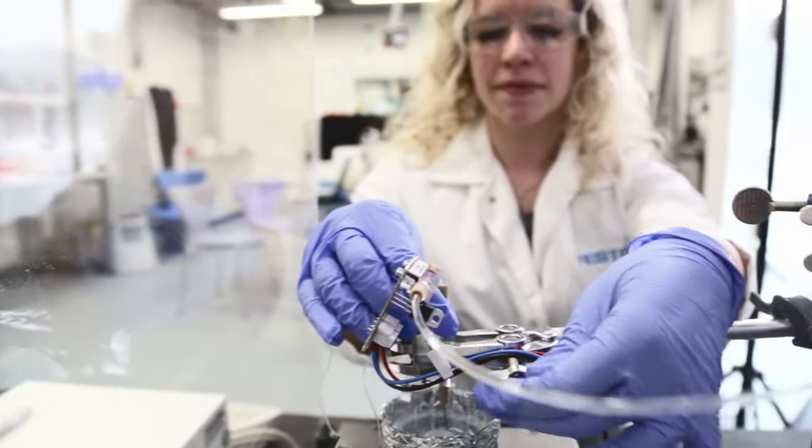Our extensive experience in medical technology enables us to take your specific requirements into account as early as the concept development stage. Get in touch with us!